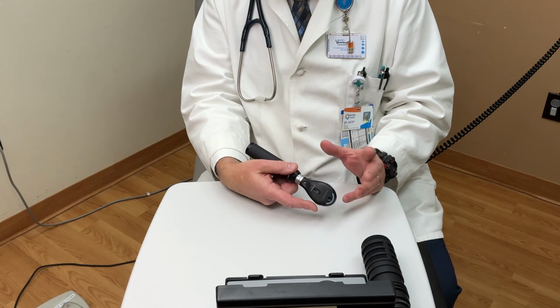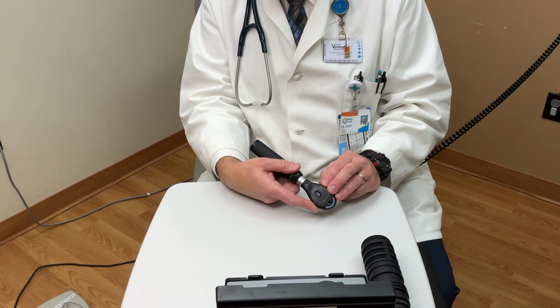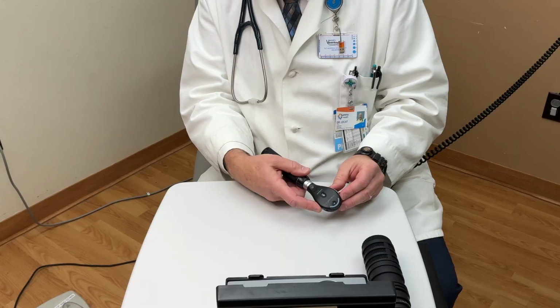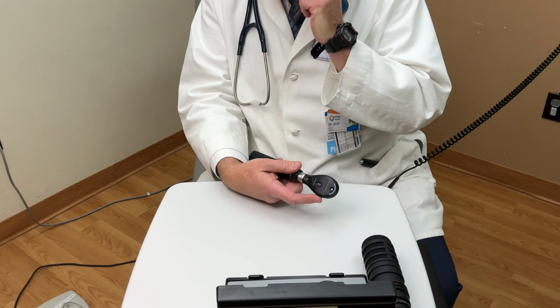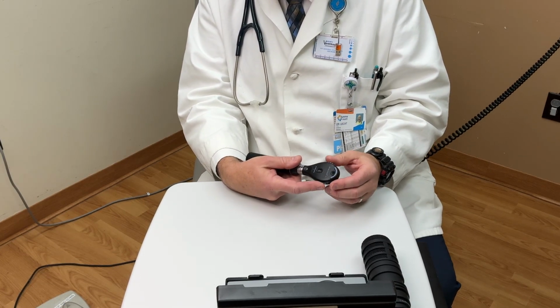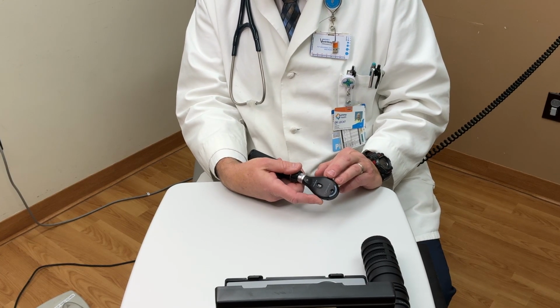So one of the most confusing aspects of using the ophthalmoscope is how do I adjust these lenses for my own vision and the patient's vision? It's really not that complicated. So this wheel allows you to adjust diopters of the lenses. The red lenses are typically for nearsighted patients, myopic patients, and the green lenses for presbyopic patients or those who are farsighted. Almost everyone is in the red range, and I tell my students, are you in the red?